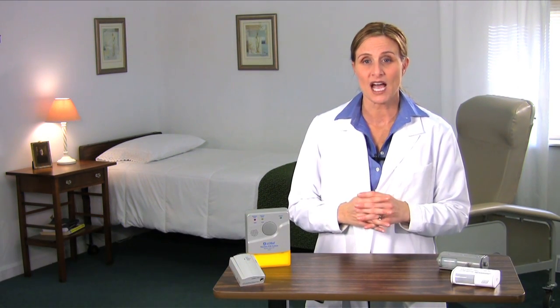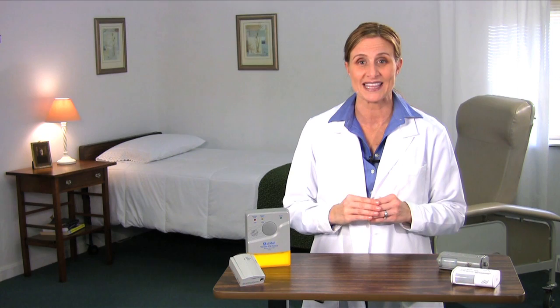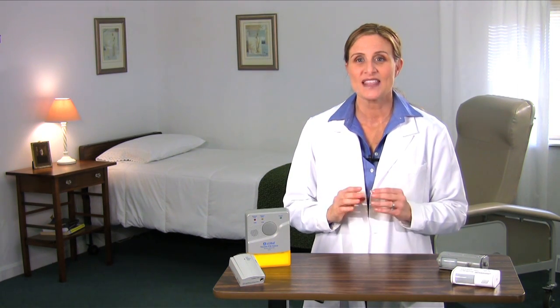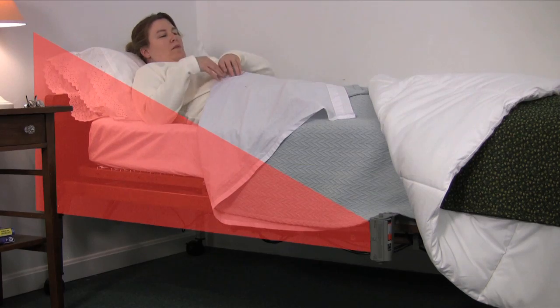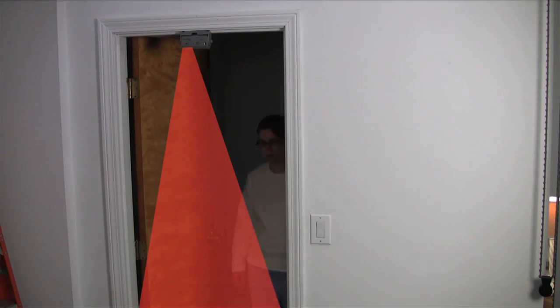The PIR alarm is a high-tech fall alarm that uses infrared technology to create an invisible field, which, when disturbed, triggers an alarm. So when a patient attempts to rise, the beam is broken and the alarm sounds. This alarm is ideal for monitoring fall risk patients or residents who may attempt to get out of a bed or exit their room unassisted.